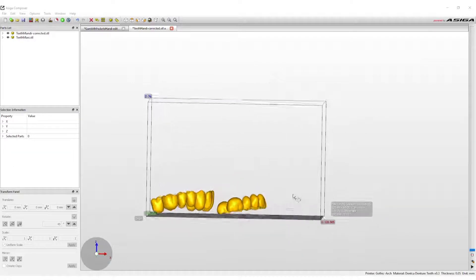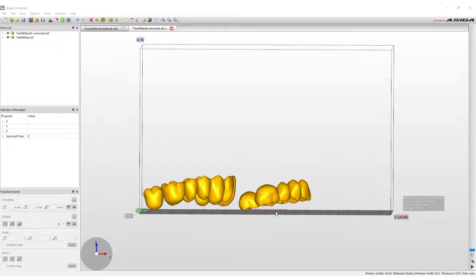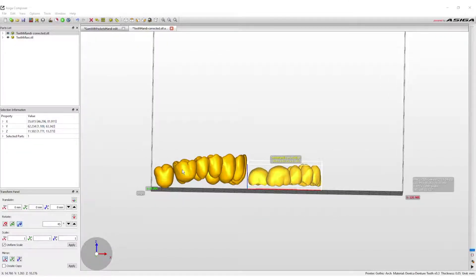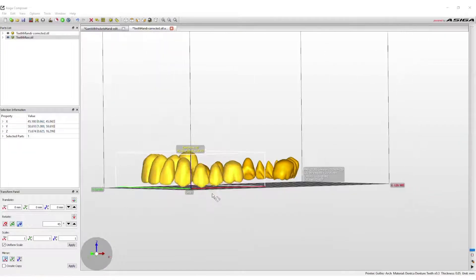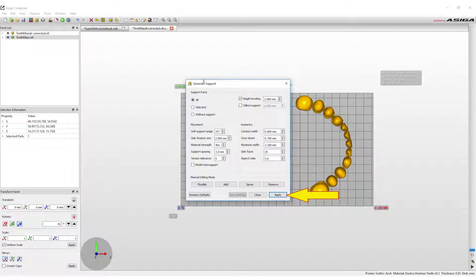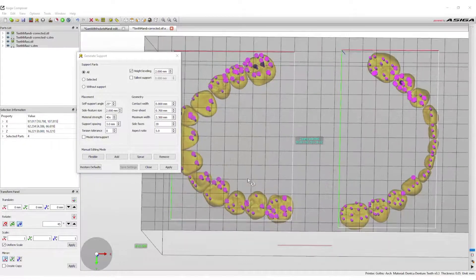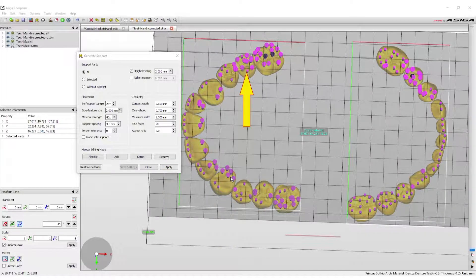For printing teeth, always have the occlusal surface pointing towards the build plate. This avoids having to cut supports off the occlusal surface of the printed teeth. Maneuver the teeth so they're aligned correctly. Left-click on the teeth and hold to move the set around the build area. To select another set to move, left-click on it. Then right-click and hold to reverse the orientation of the teeth so the occlusal surface is facing the build plate. When finished with the arrangement, click Generate Supports and click Apply to generate the supports needed to build the teeth. Move the point of view of the print window to see the supports generated. To add supports, click the Add button and select where to generate a support. To delete, click the Remove button then select the support to delete.